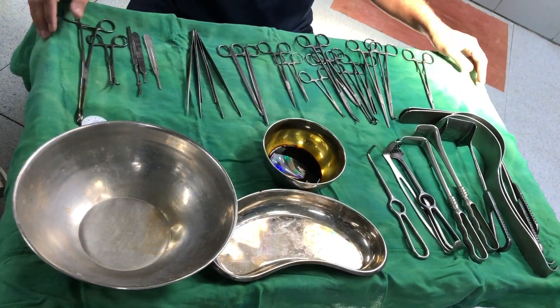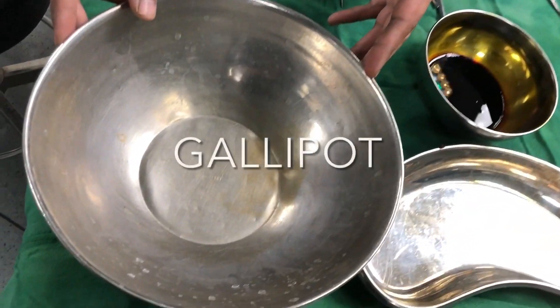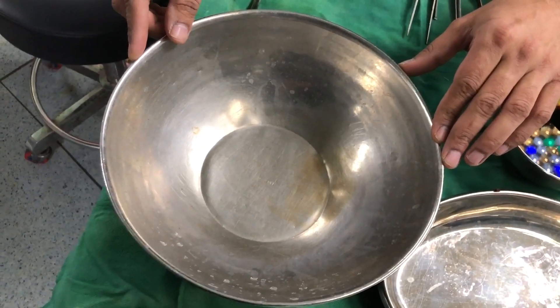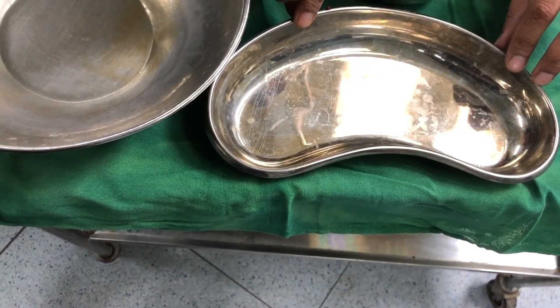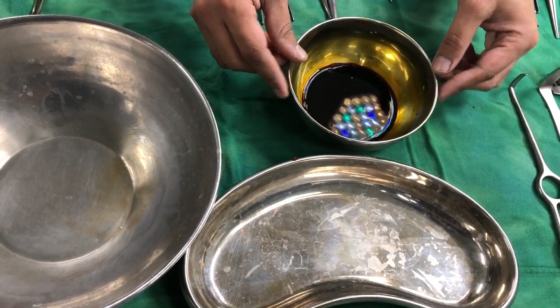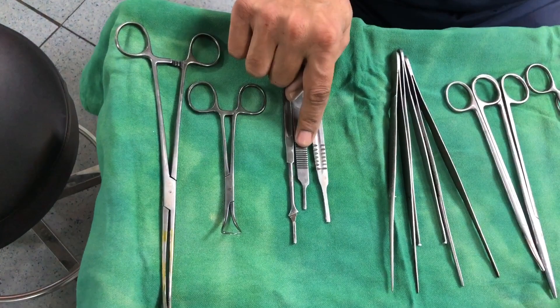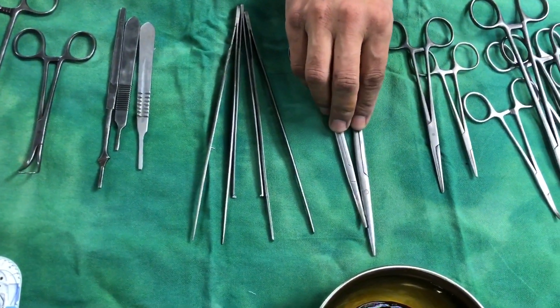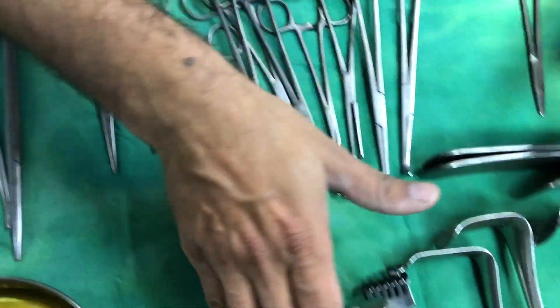Surgical instruments can be divided into different varieties. These are the containers — this is a surgical bowl, this is also a surgical bowl, and this is a kidney tray. The capacity of this surgical bowl is 3.2 liters; capacity of the kidney tray is around 700 ml. There are also scrubbing instruments, towel clamps, holding instruments, cutting instruments, graspers or tissue holders, and retractors.